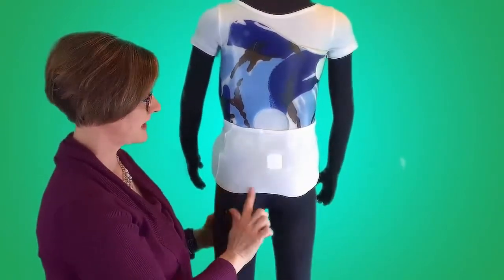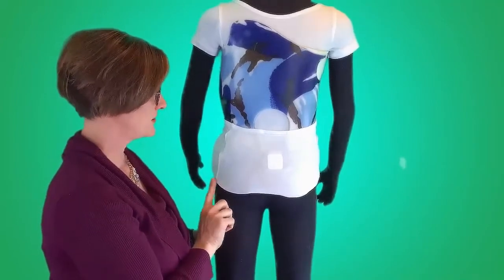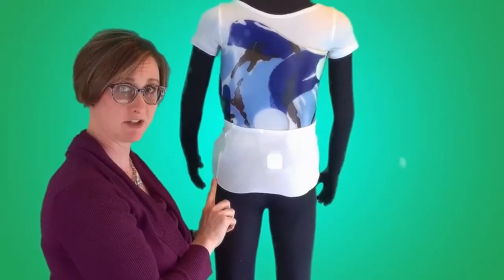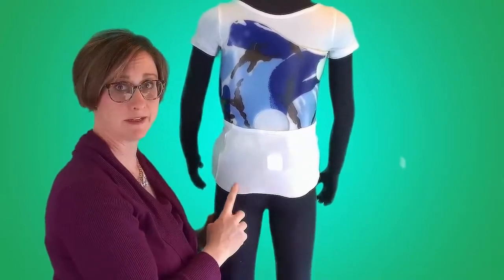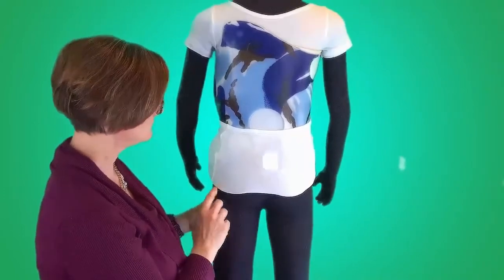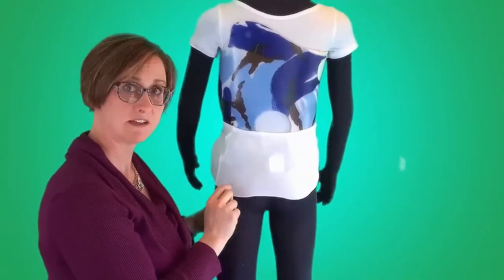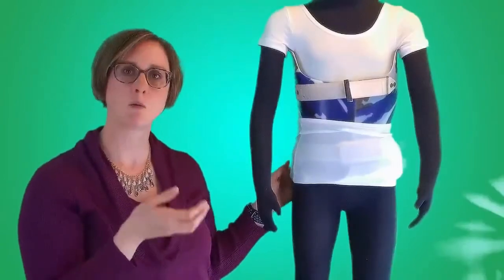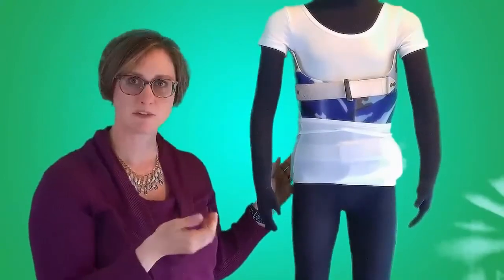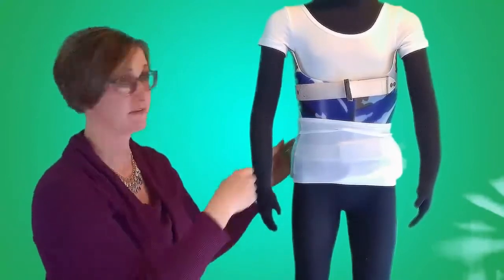One of the largest areas of concern is back along the edge of this plastic. As your child sits and gets up from hard chairs all day long, as this rubs on the inside of the pants, and although it feels smooth, over time that additional friction can make it susceptible to holes. So those are the places you're going to want to treat with some sort of covering along the edge to really pad the area and prevent wear and tear.